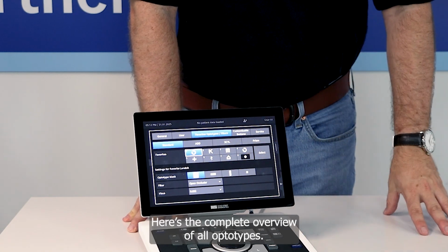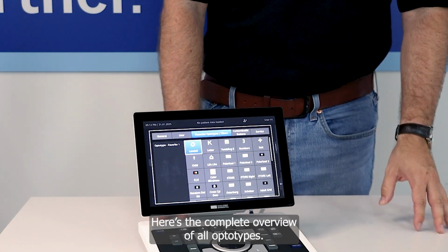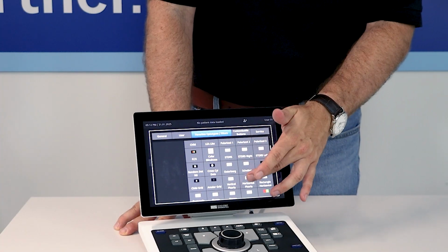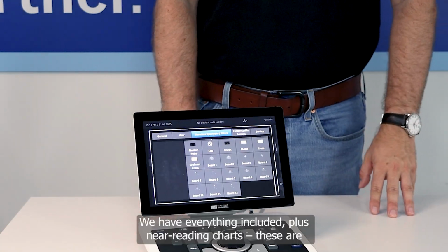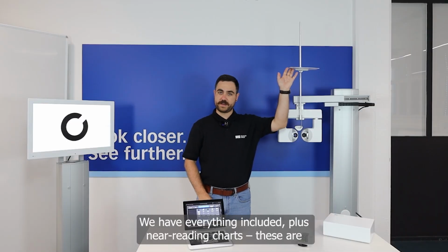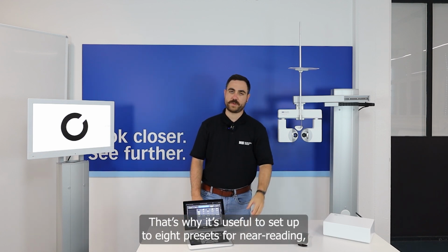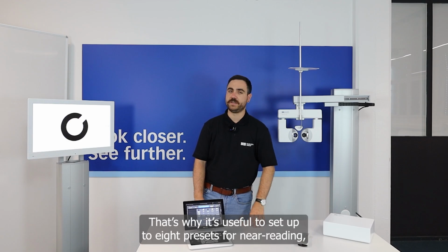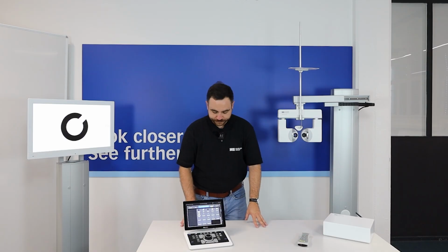But what I want to show you again is the overview above all our optotypes we have. You can see here it's huge. We have everything inside, and also the near reading charts. So the near reading charts you will find here, you will find also here. So that's why it's nice to make up to 8 in the presettings for near reading. Then you can see what the patient will read for you.